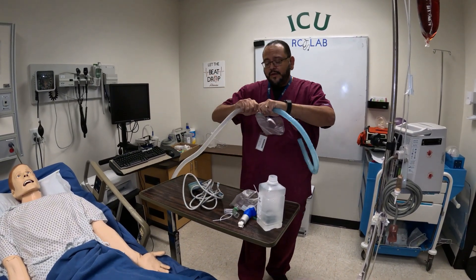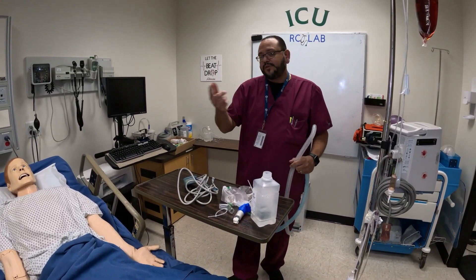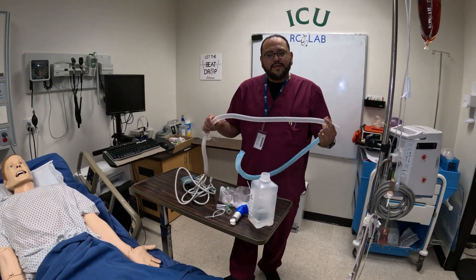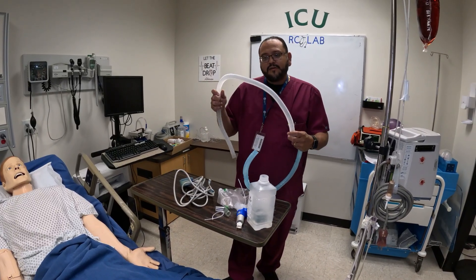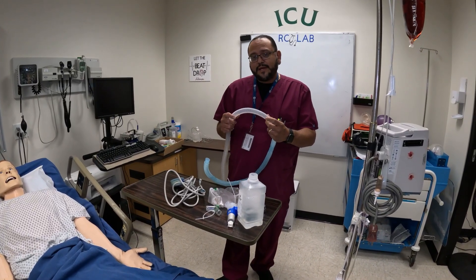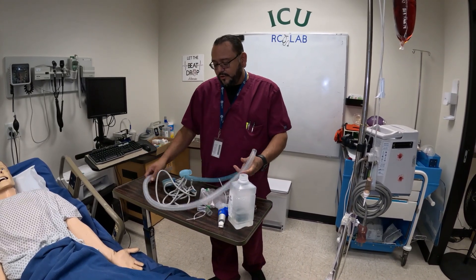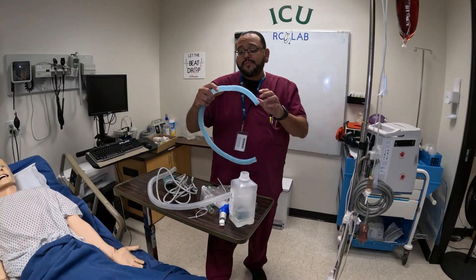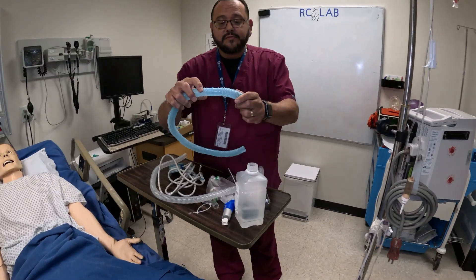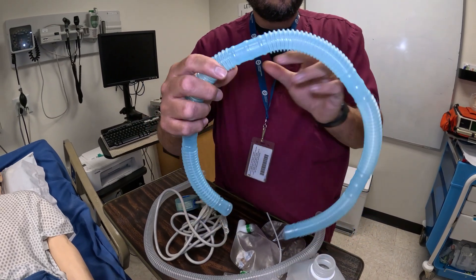This is your tubing. It usually comes on a big roll that the hospital buys, and you'll need scissors to cut it to the proper length. I gauge it by grabbing enough that I feel will be long enough, and I make any adjustments at the bedside when I put it on the patient. If the tubing is a little too long you can cut it in sections. Make sure you cut at the middle section where there's a little raised part — that's where you want to cut it.